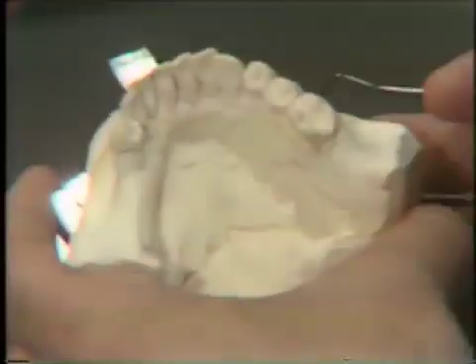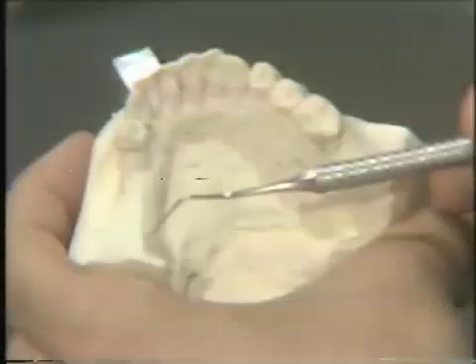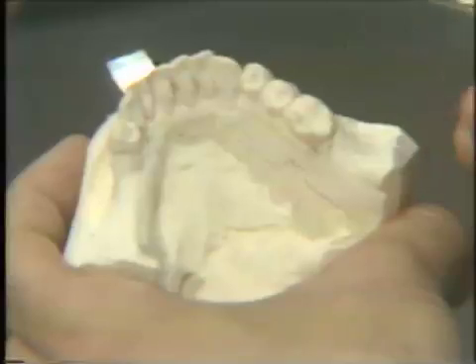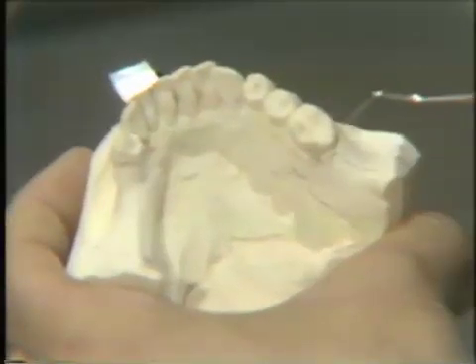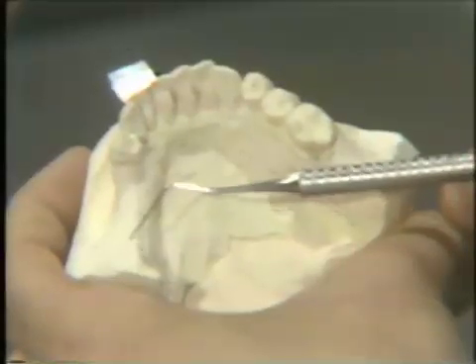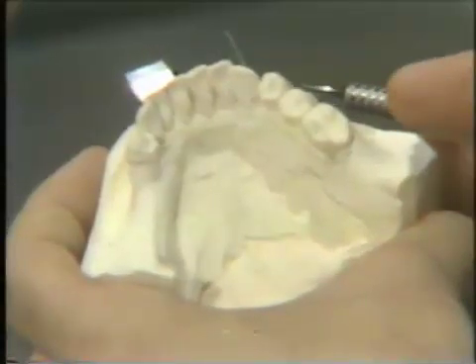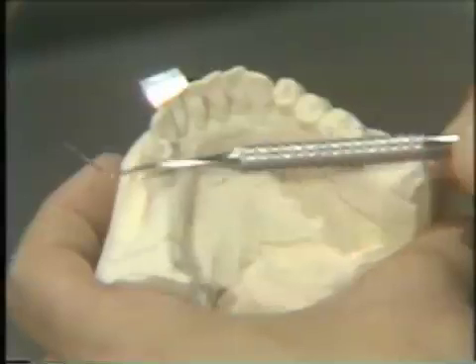The basic problems we are confronted with are these. We have the potential support area — the edentulous ridge for the partial — and we have two abutments, which we are going to need for distribution of forces and for retention. As the base is on movable tissue and we potentially have two occlusal rests as primary occlusal rests, the base is going to rotate slightly into the tissue on the edentulous side. Therefore, the framework is also going to have to move slightly, and in a class 2 situation, it is extremely difficult to accommodate that movement.